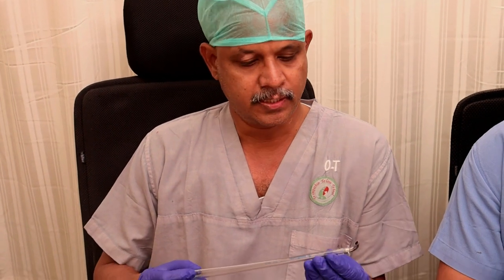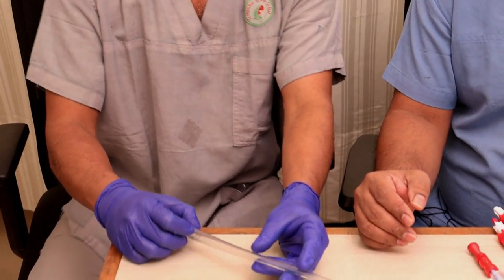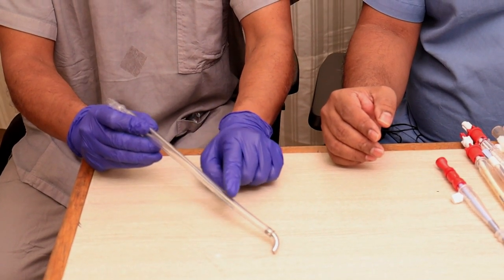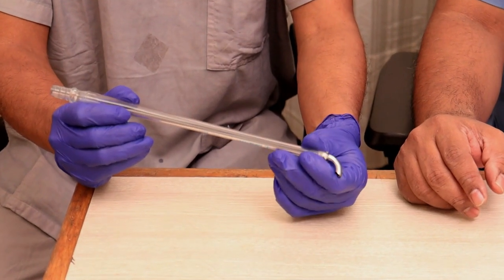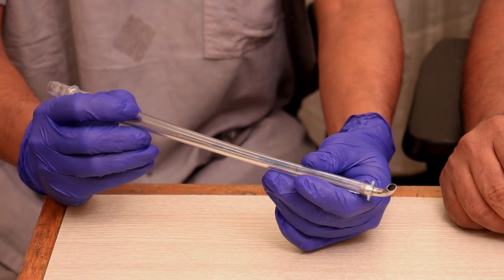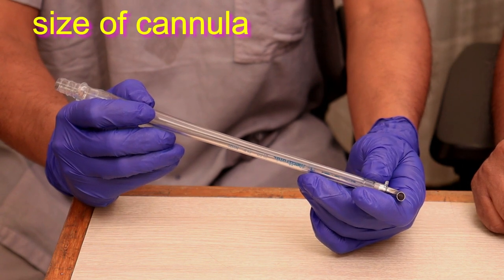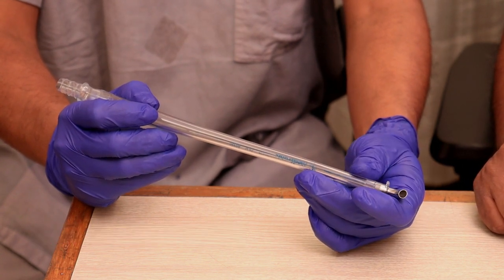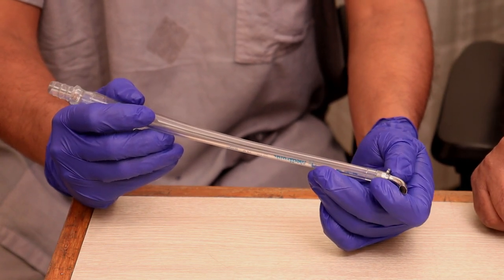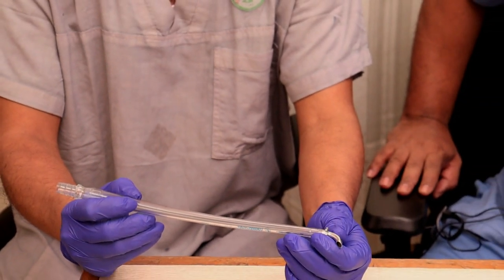Blood is oxygenated in the heart-lung machine and returned to the arterial system through the aorta. This particular cannula being shown is the aortic cannula, through which oxygenated blood is returned to the patient. It is designed for placement in the ascending aorta. As a perfusionist, the cannula size is chosen based on the pump flow rate calculated for that patient — BSA (body surface area) multiplied by cardiac index gives the total pump flow rate.